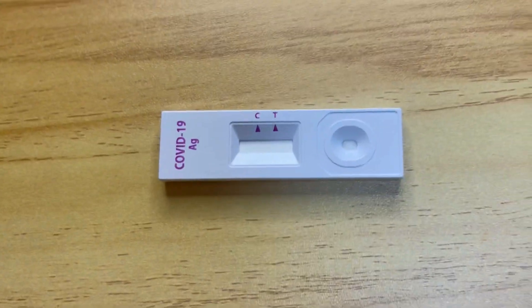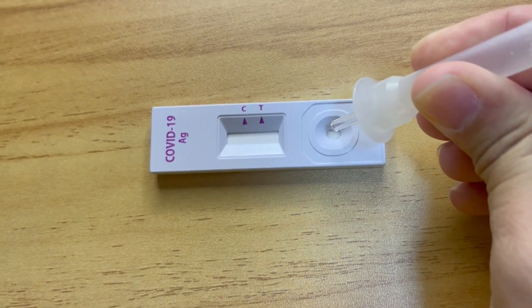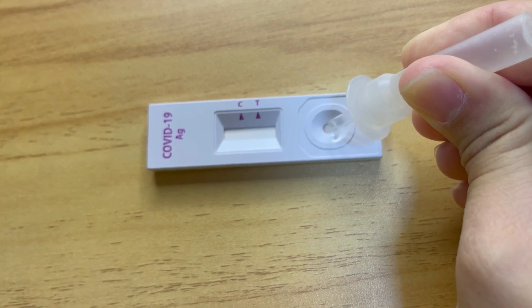Okay, so this one — I have to put it here and cover it with this. Then I have to put it so it will be like this. You have to put five drops: one, two, three, four, five.